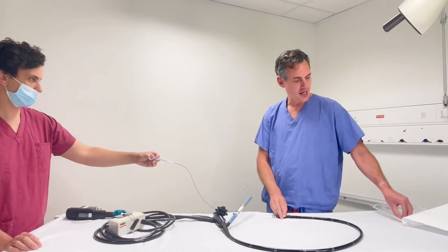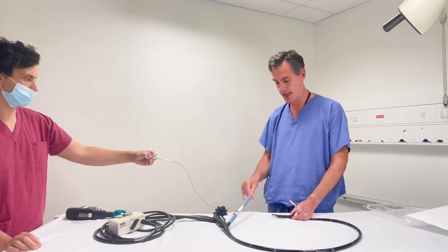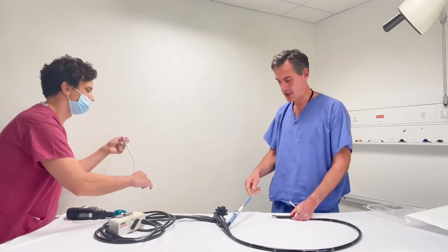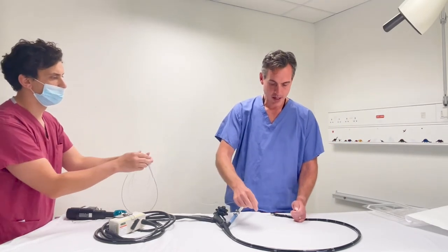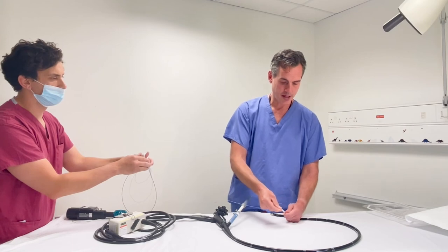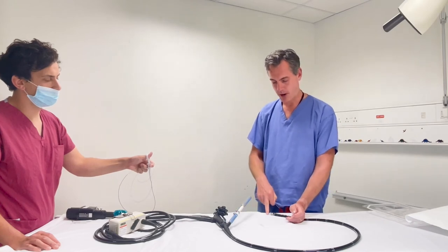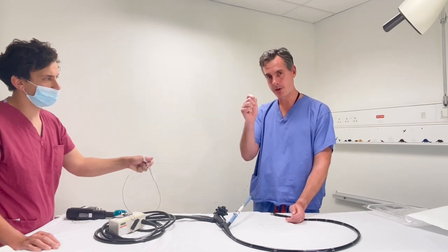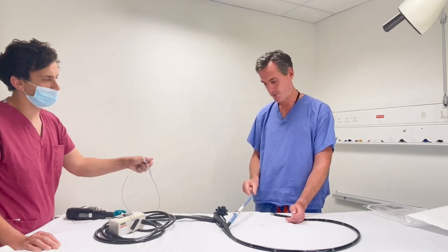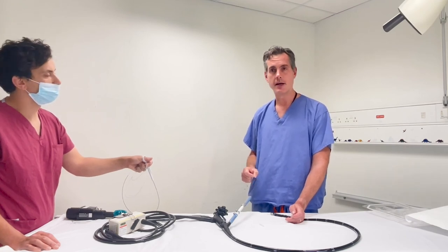At that point I'm going to take my needle back in the normal way — or if I plan to take fluid off, I'd leave the needle in. My assistant is handling the sample, putting it over a sample pot and stirring it around. It does come with a small device which is a very fine-tipped needle just to tease out any samples. Whilst that needle is in place I can go again with my micro forceps, aiming at that cyst wall or the nodule. Once I'm finished with my samples, I can then very quickly put my aspiration syringe onto the tip of my needle and drain the fluid in the normal way for analysis.